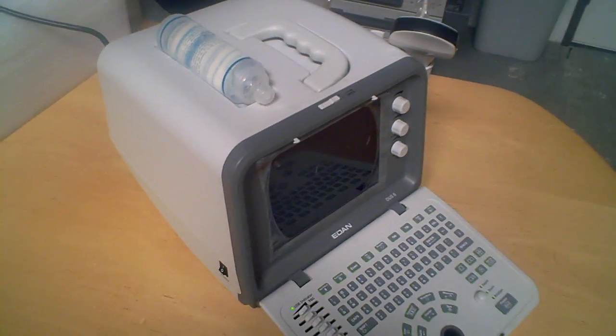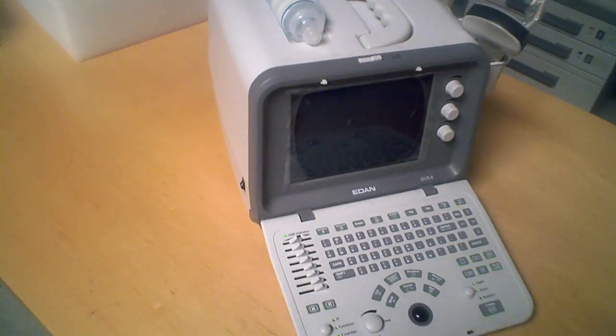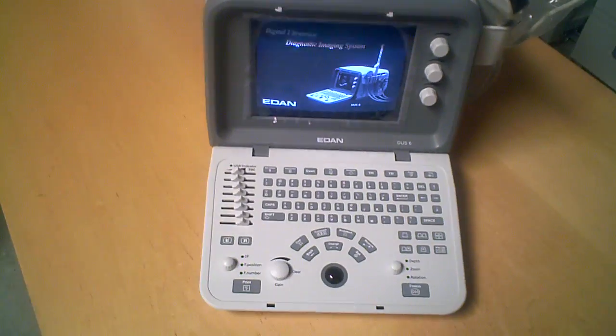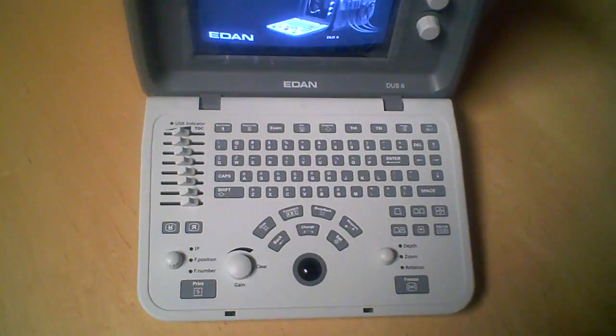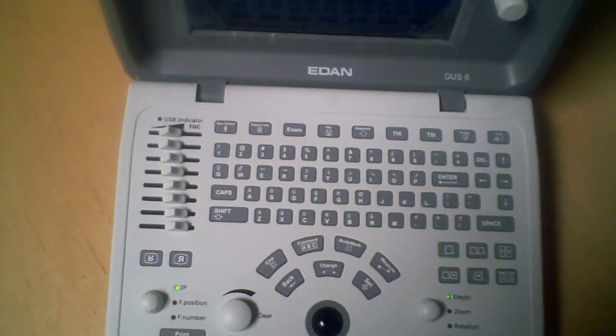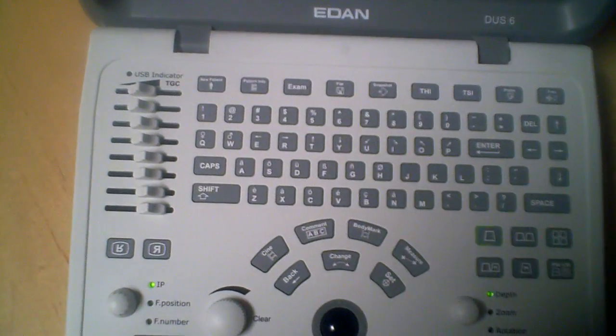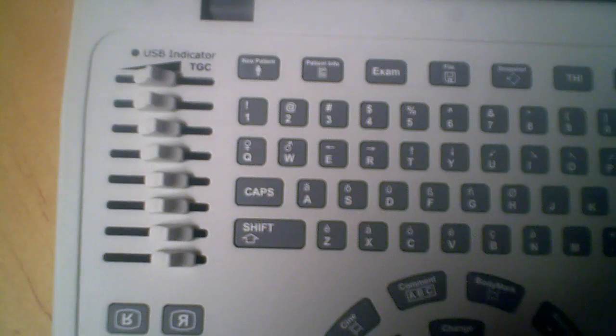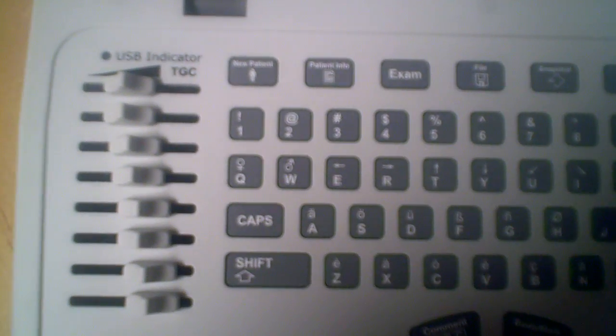As we rotate over, you can see that it does have a full keyboard. We'll go ahead and zoom in here to see some of the features that are on here.